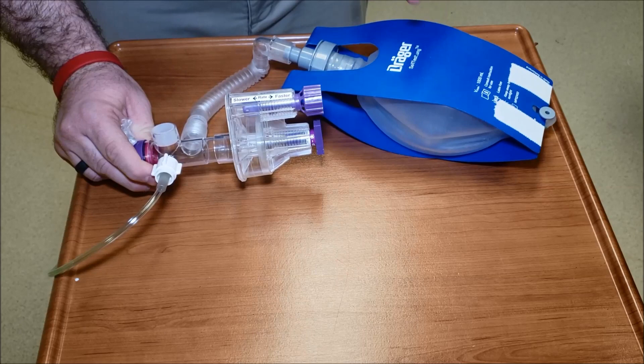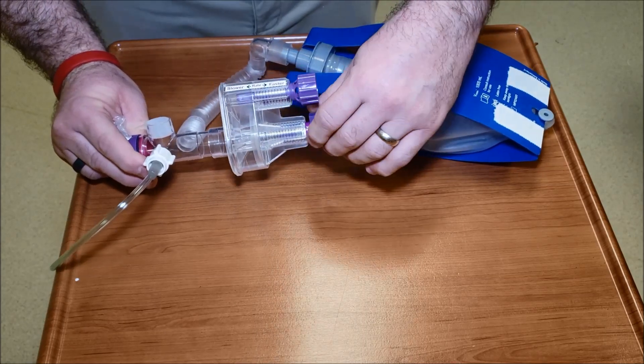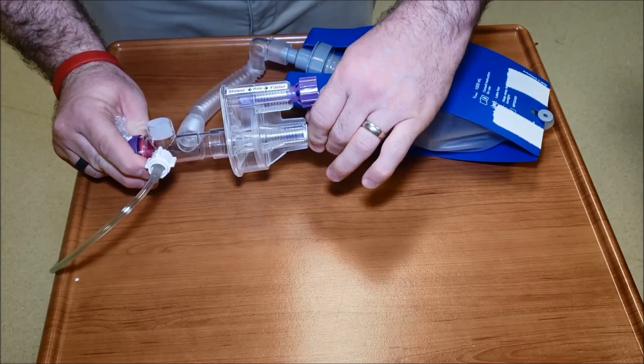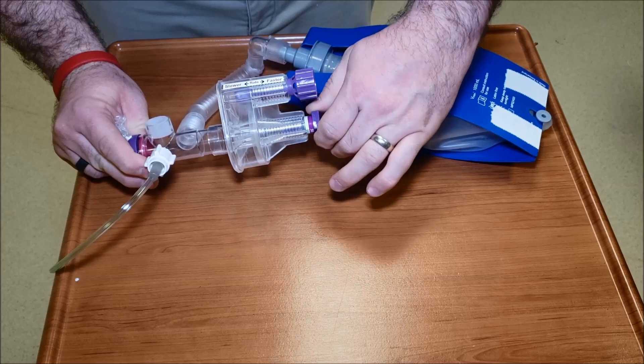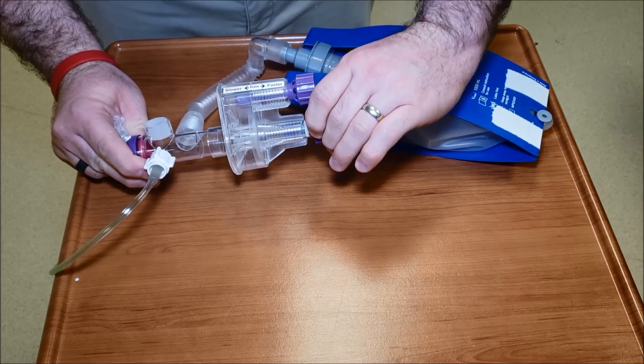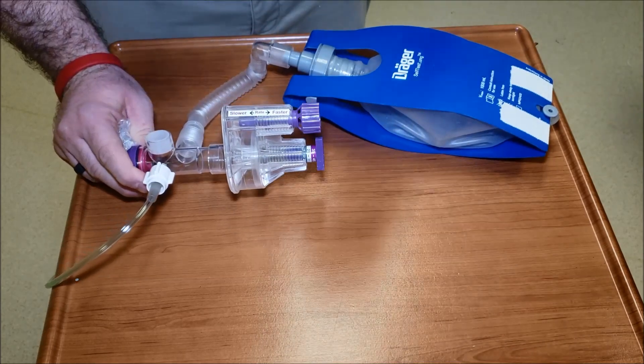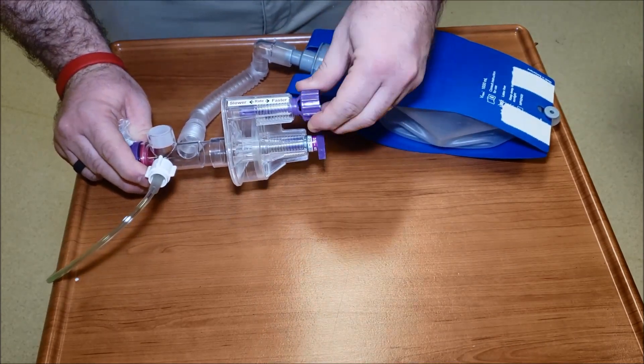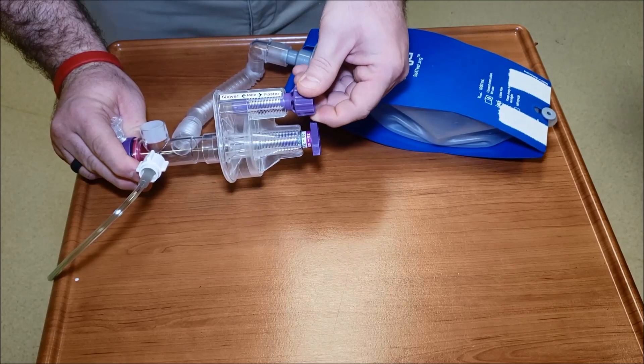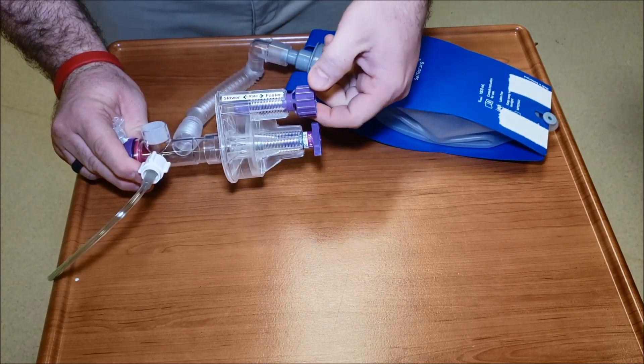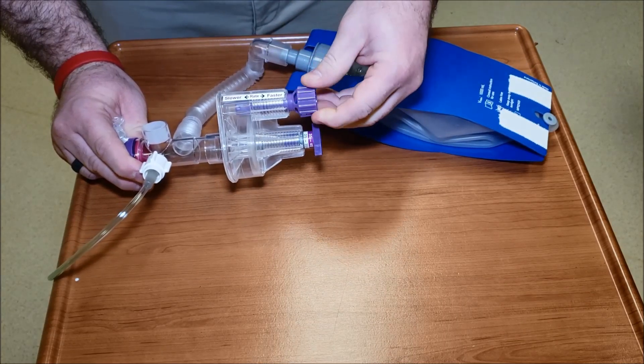The deal is with the test lung it's really hard to simulate because the pressure gets up to about 25 or so and then the waveform is pretty flat after that point. So it is 25 and then hits 35, 45, 55 really quickly. So back to 25 again. Let's readjust our rate to what we like. We start slow and we're going to turn it counterclockwise.